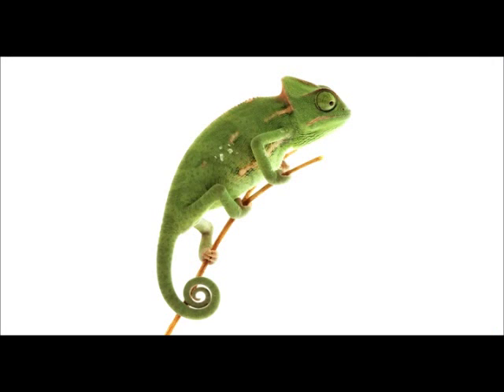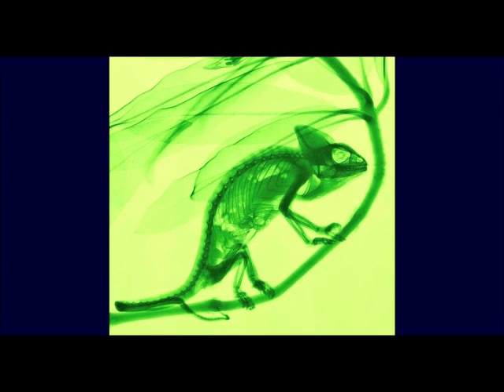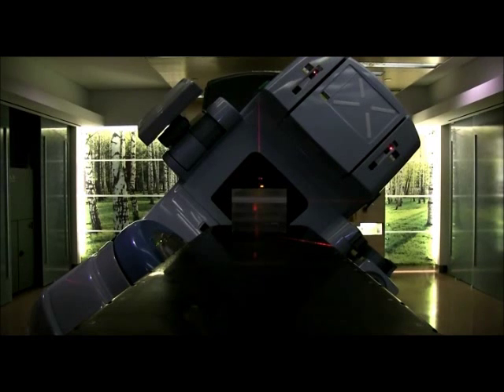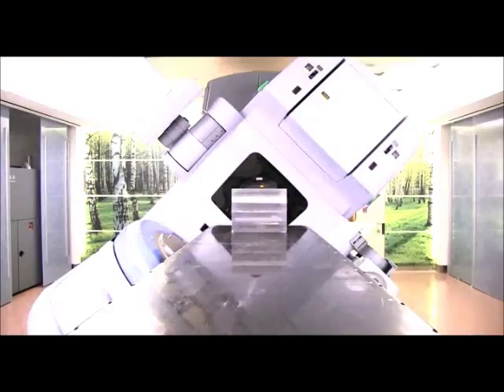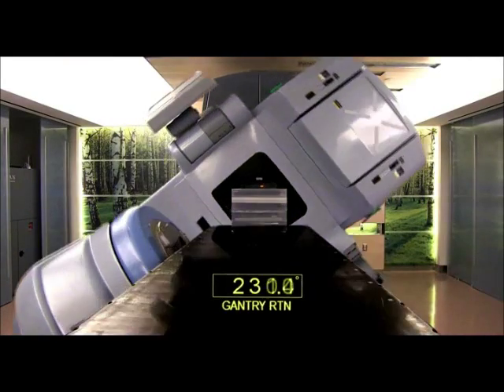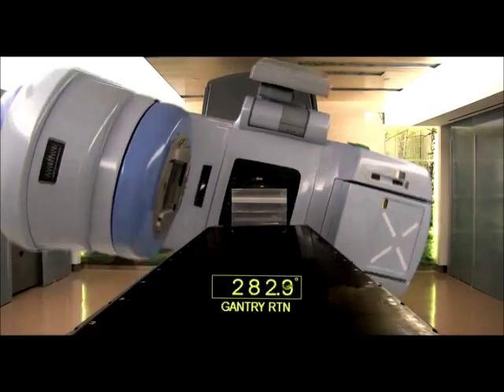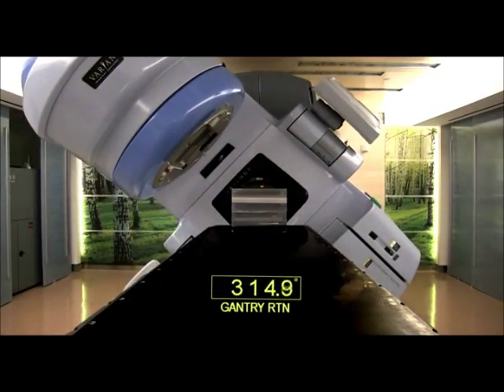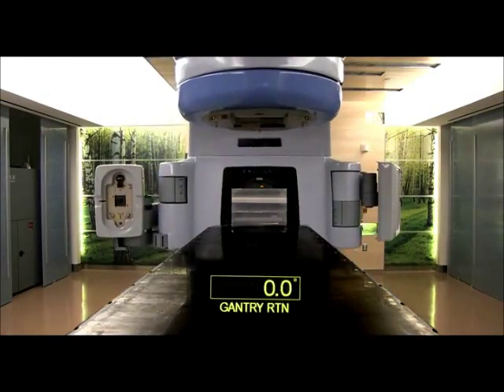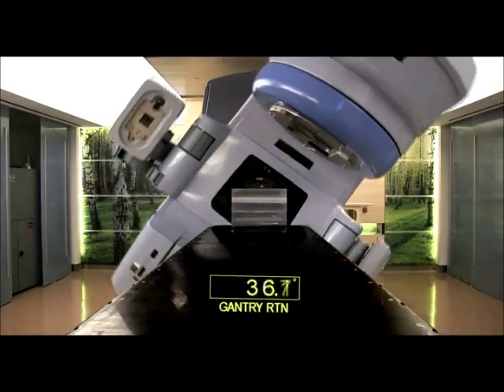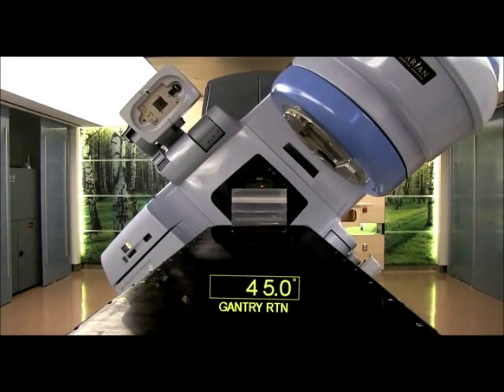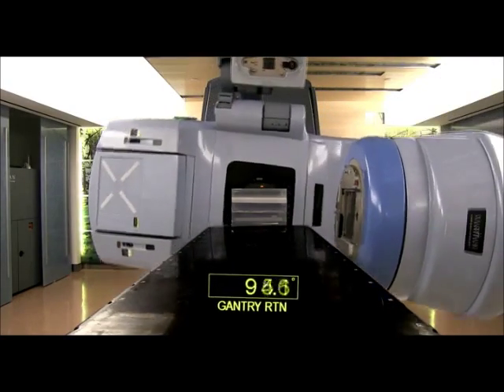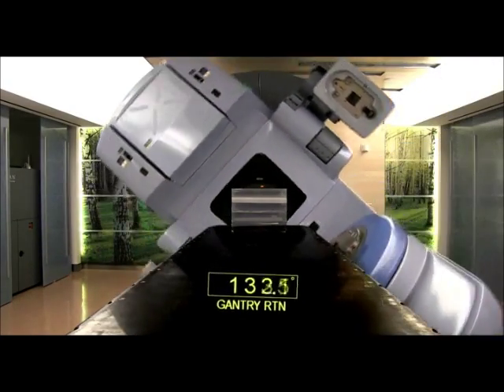Hey, here's an example from left field. If you were shooting, say, a chameleon instead of a plan, look what you'd get with an array versus what you'd get with film. And because film's tissue equivalent, with no angular dependence, you can shoot from all angles. An entire plan on one piece of film. So you can validate the plan the same way the patient receives it.